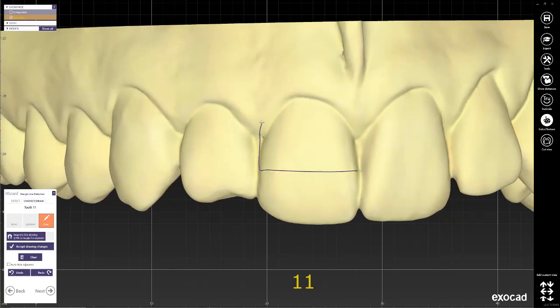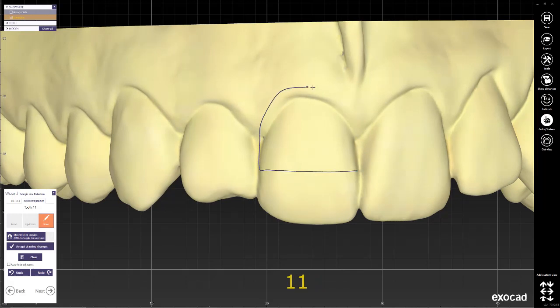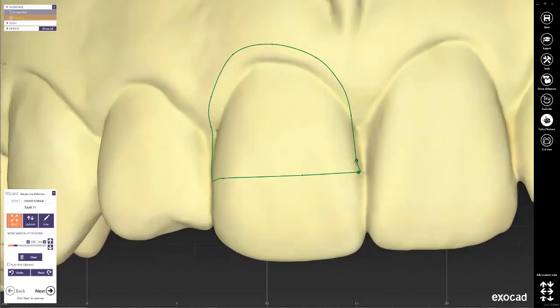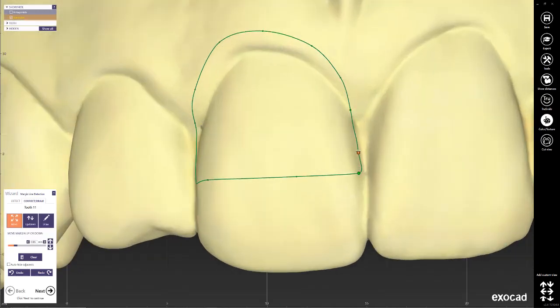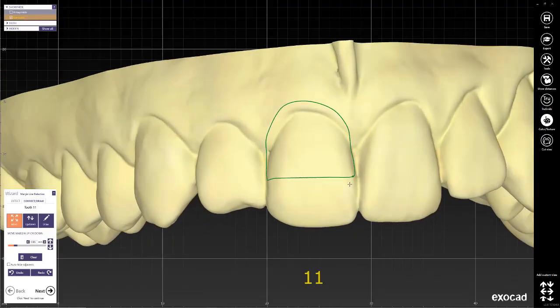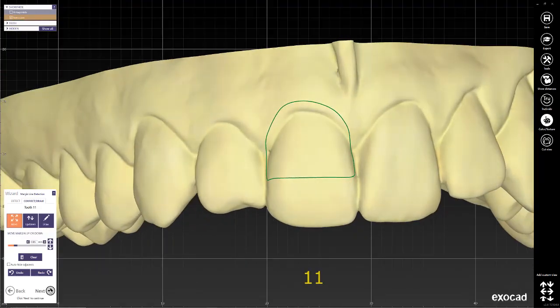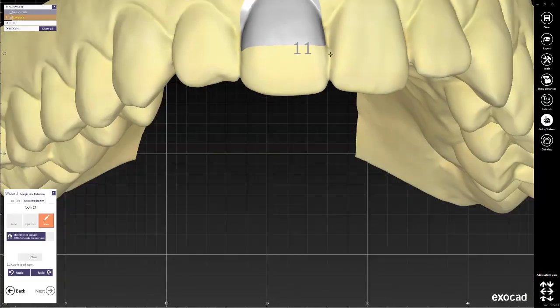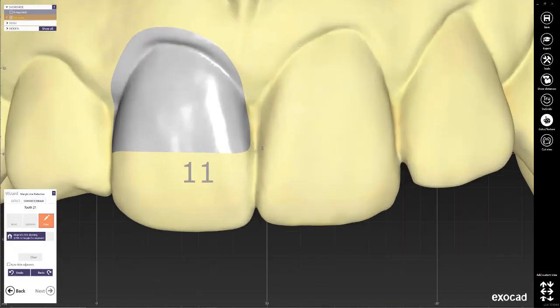Then I can see here all the necessary information in order for me to create the window, and we can do something along this line. We'll do the same thing on the other side to the other central.